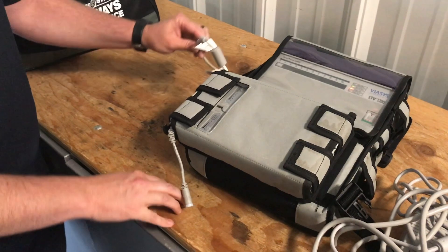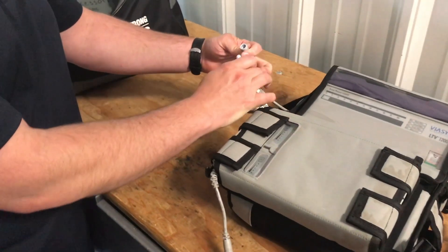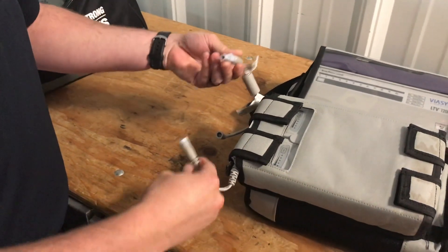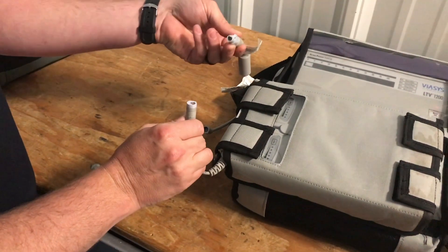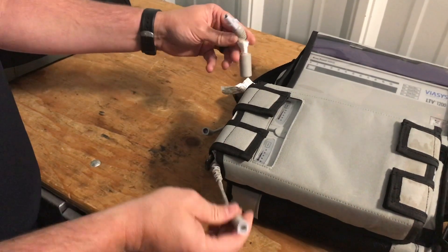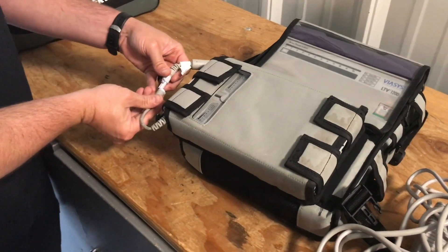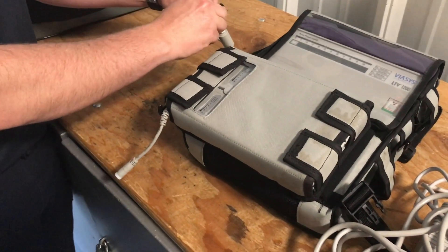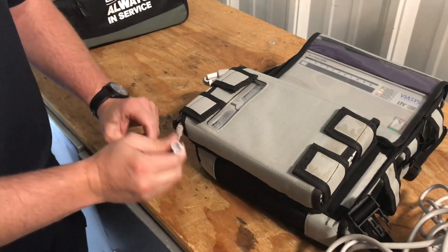One additional thing to note: these side clips are made to only go one way, but on this auxiliary battery pack you could connect this side to this side and they would clip into place. We don't ever want to do that because it will create a dead short and damage the batteries — so don't ever clip these two together. These should always be connected and will charge off the lower port.